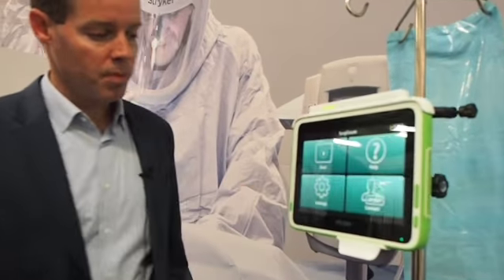So the system is going to protect the nurse, which is ultimately going to protect the patient. If I already counted this sponge out, I can't count this sponge out twice. That's one of the ways that false correct counts currently happen within hospitals — a nurse counts something twice — so they know they have to keep scanning for additional sponges.